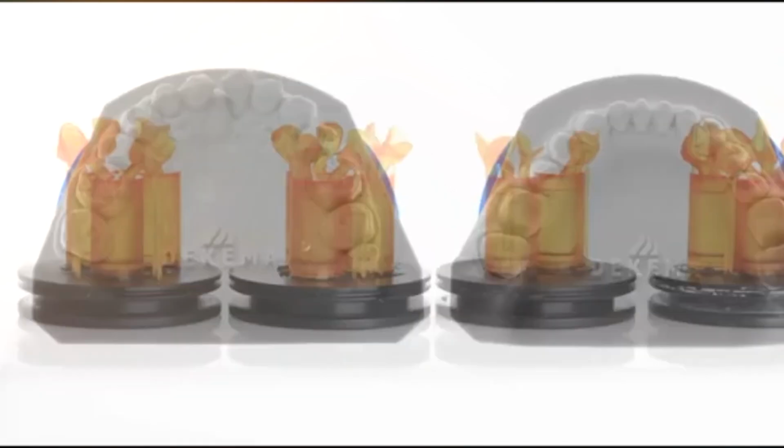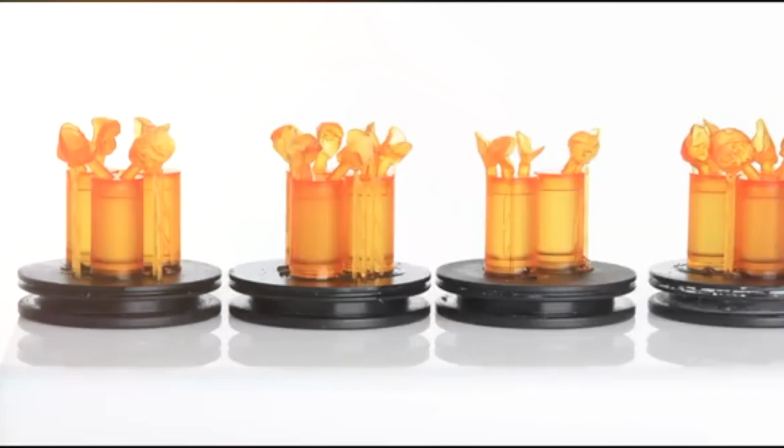And after printing, we have the base of the rings that we will use for the pressable technique, with the crowns printed directly and the space for the plunger in this base. So there is no human hand that puts screws or something. It's set automatically by the program in this position.